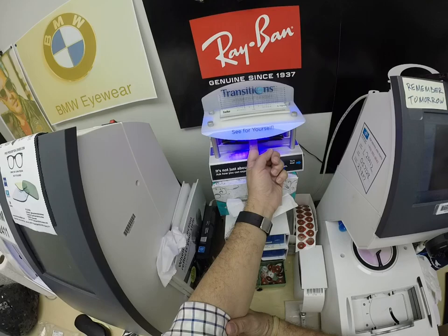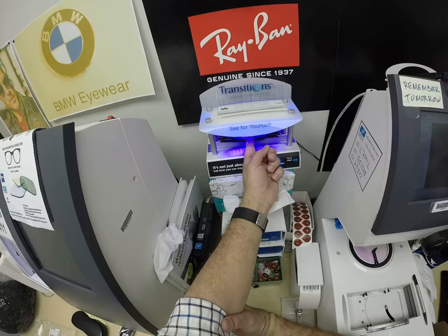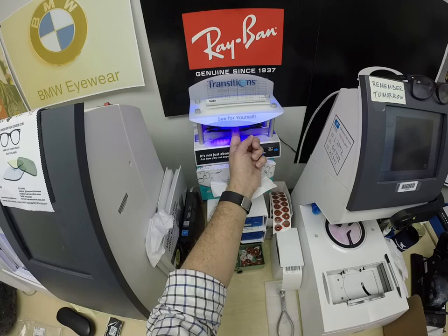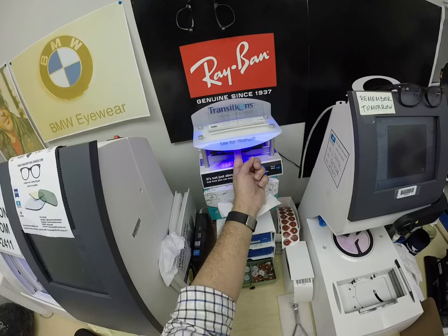This is important — Mark and everyone else, pay attention. All photochromic lenses will get dark on day one and continue to darken every day for the first couple of weeks of exposure to the sun. After that, they work for years at maximum performance. The only time they won't work is if you're behind the windshield of a car. Your windshield absorbs the sun's harmful ultraviolet light — that's what would cause the dashboard to crack from sitting in the sun all day — and that's why they don't turn dark in a car.